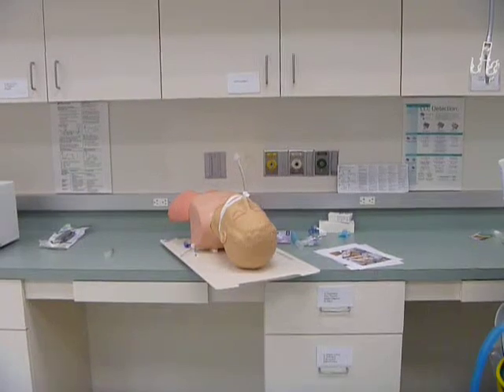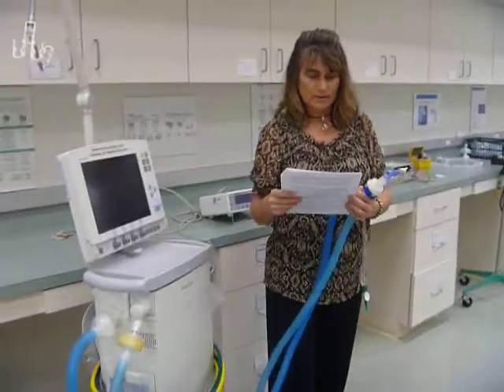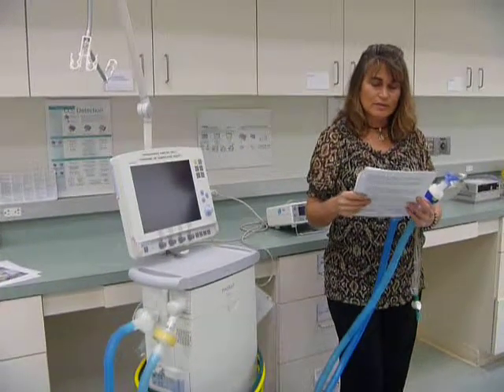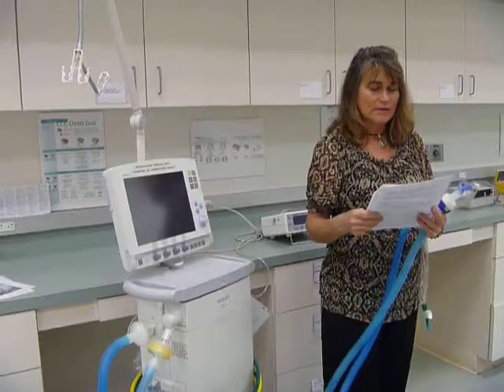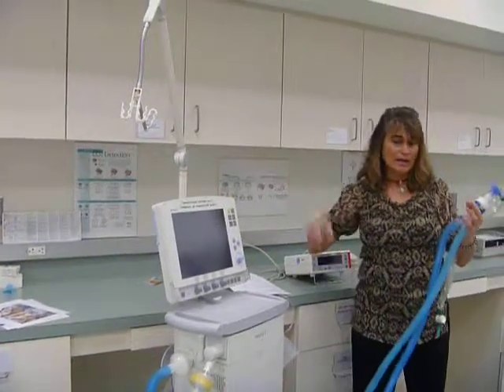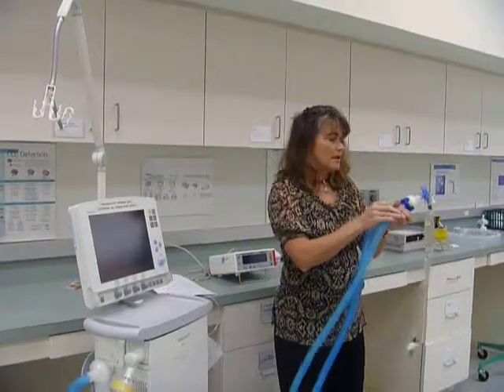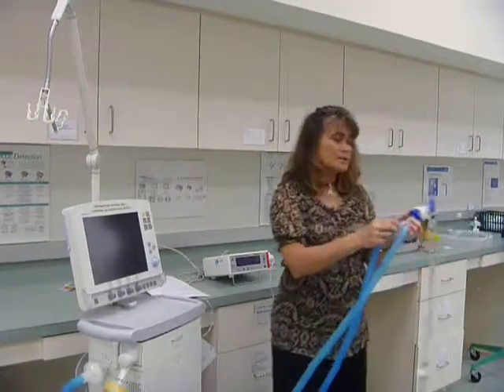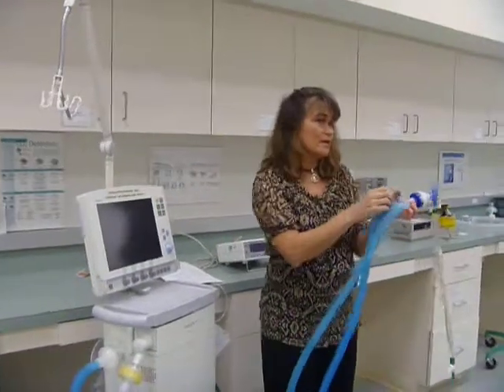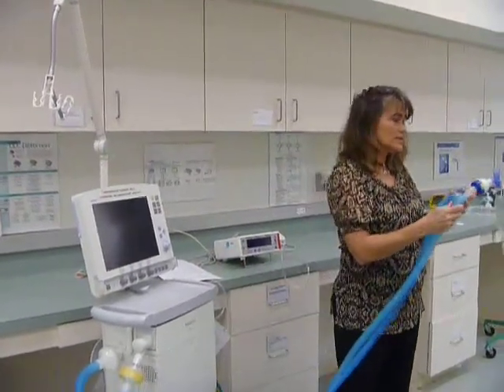Next sentence. Explain why it is necessary to have no leaks in the circuit. And then it explains it. Instead of the air entering the patient's lungs, the air will exit through the leak in the circuit. This will cause less air delivery to the patient's lungs. So when we set up a circuit, we can't have anything open because when the air gets delivered, instead of it going to the patient's lungs, it's going to go out the leak. So let's say this fell off, and now it's time for the ventilator to give a breath to the lungs. Yes, a little bit of air will go to the lungs, but most of it's going to come out this leak, or this hole in the circuit. So it's really important to have no leaks in the circuit so that all the air goes into the patient's lungs.